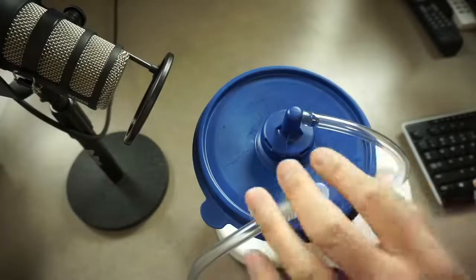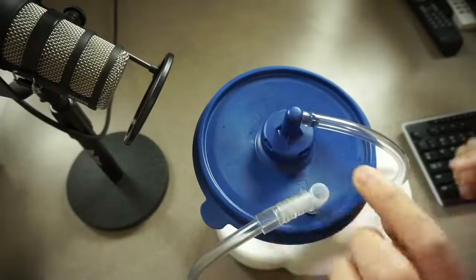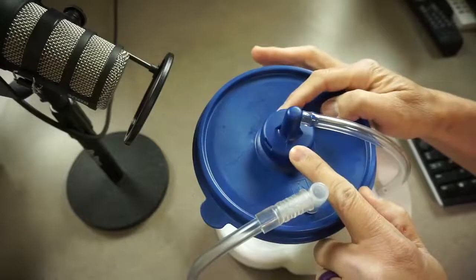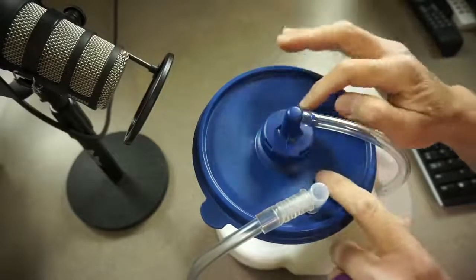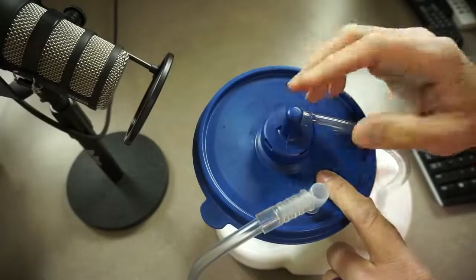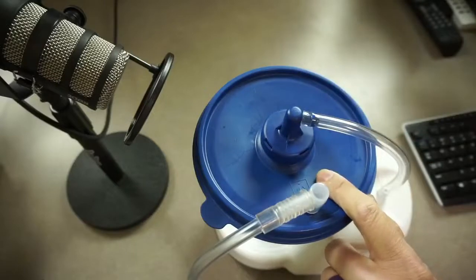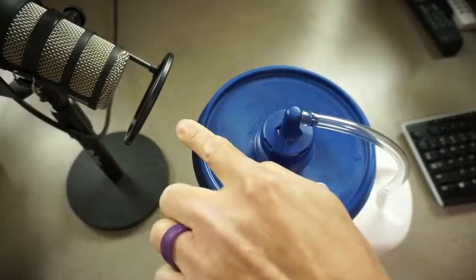If it's really loud, it's usually some sort of a leak. If this is not placed properly on top of this canister, then this is what it sounds like. Let me turn off my vocal microphone and leave this microphone on.